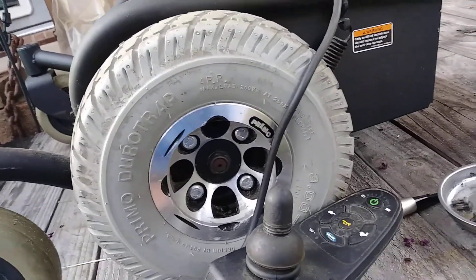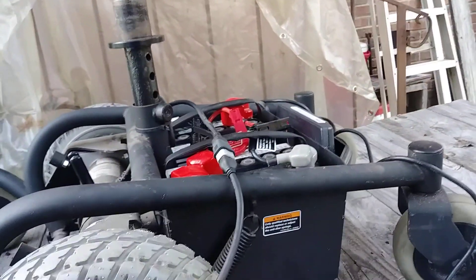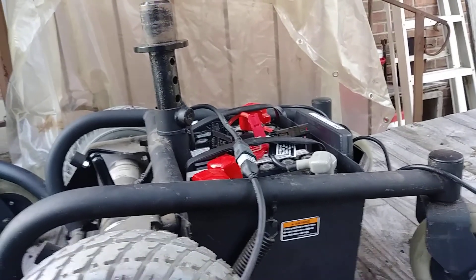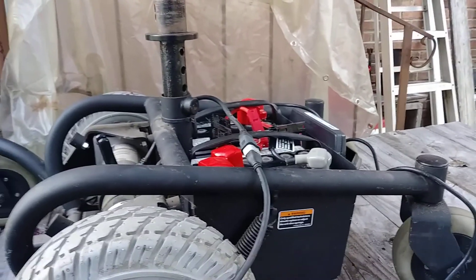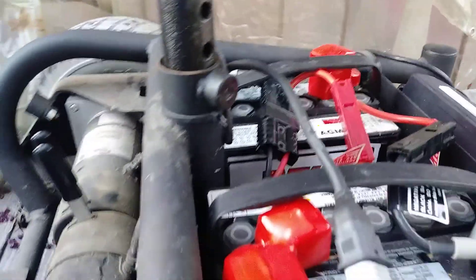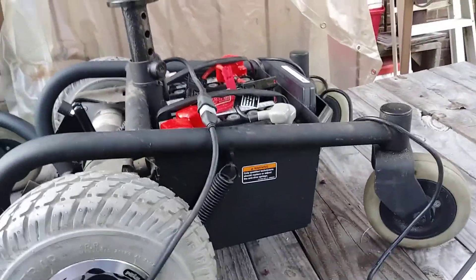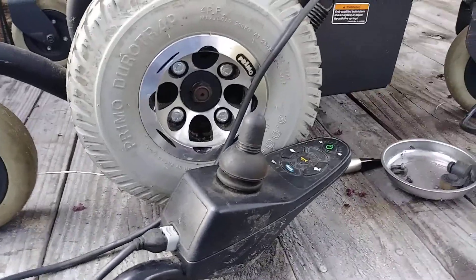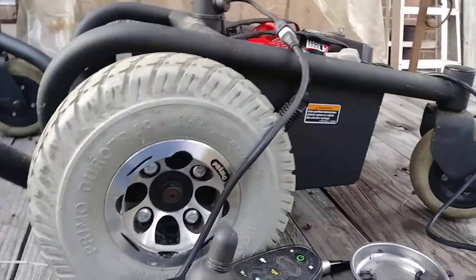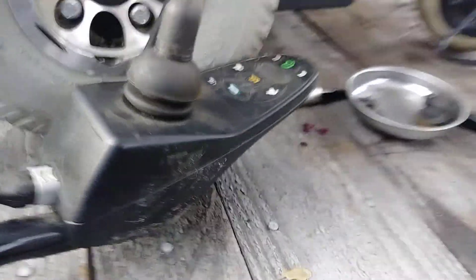Maybe now that I've got more recharge in there, I can throw my 10-amp battery charger on there independently — one battery at a time — and charge them up. Unplug all the Anderson connectors and just charge the batteries individually. Yeah, let's see what happens. Looking promising. Anyway, watch this when I plug it up.